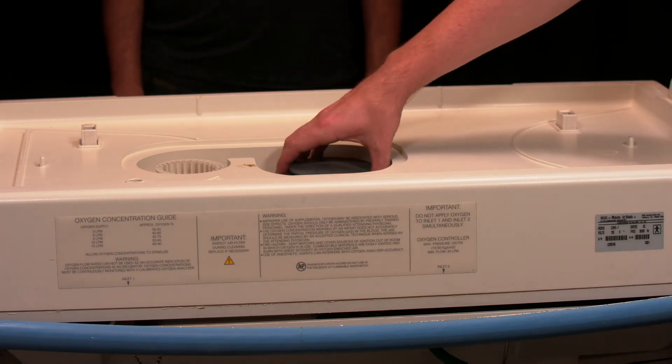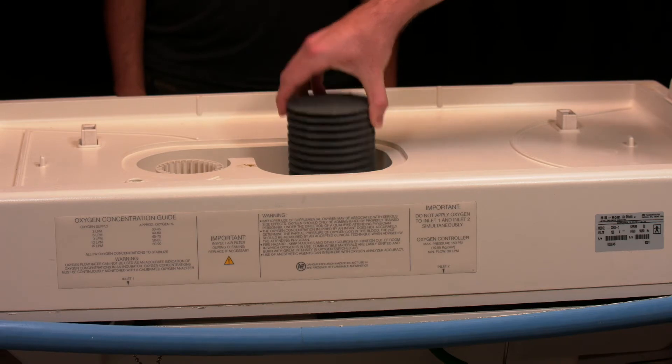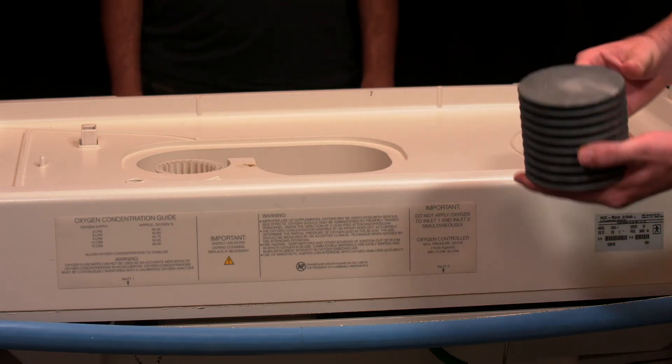After that, the last thing on top of the case that you can remove is the aluminum radiator on top of the heating unit.